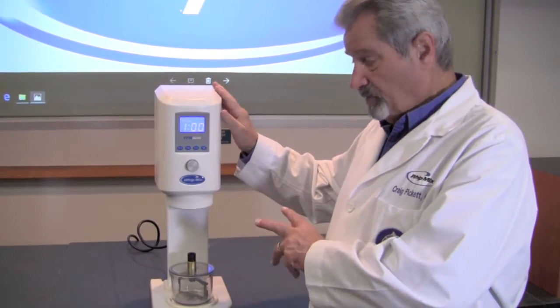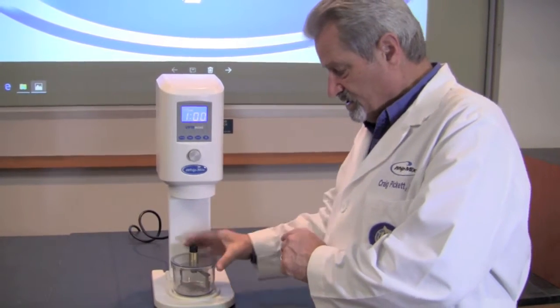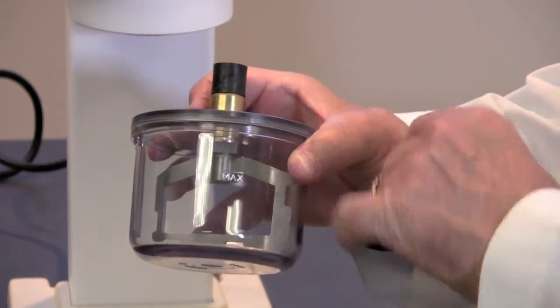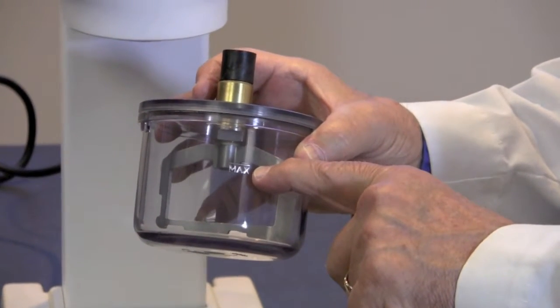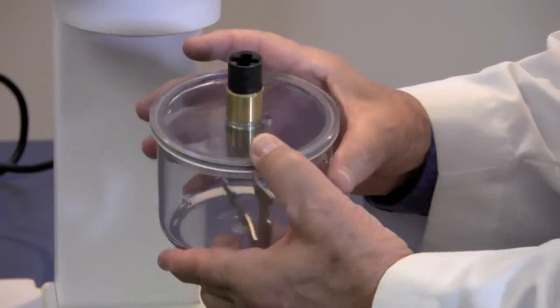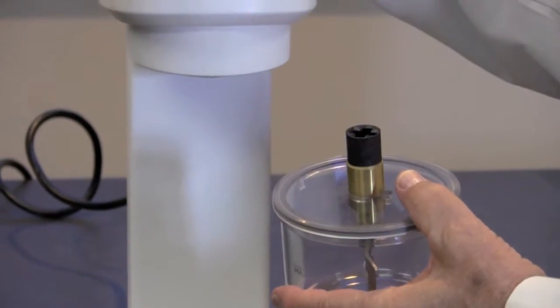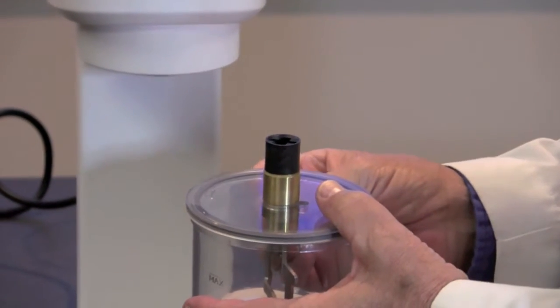With the VPM Mini there are some things we need to be concerned about, because technicians often disregard something called a max fill line, which is on each of the bowls that comes with the Mini. The powder element should be filled only to the max fill line. If you fill it beyond that line, you run the risk of the vacuum pulling either powder or liquid material through the vacuum hole in the lid and into your machine, causing problems with your vacuum. Make sure you don't overfill this bowl.